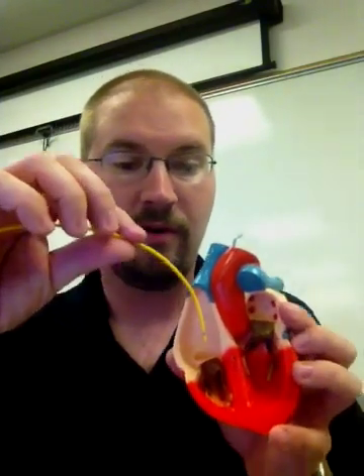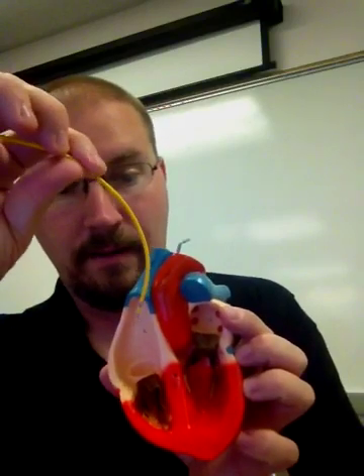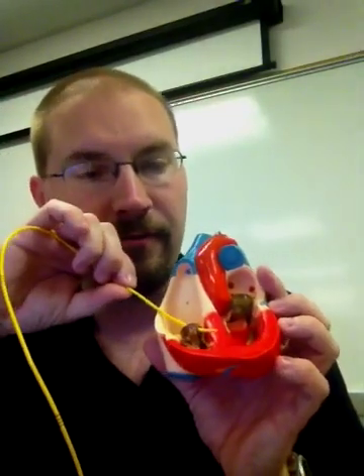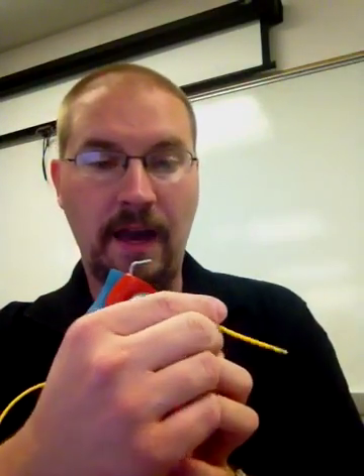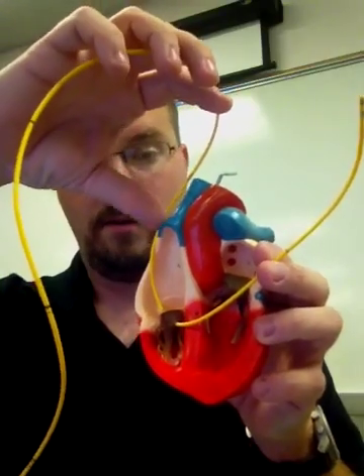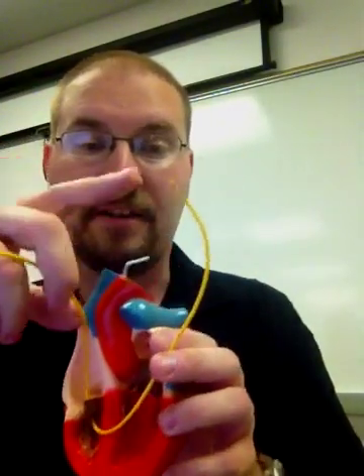The catheter goes into the heart through the superior vena cava. Just like a central line would sit right above the right atrium, with a pulmonary artery catheter we actually go into the right atrium, through the tricuspid valve into the right ventricle, and from there blood is pumped out through the pulmonary arteries. They inflate the little distal balloon and float it into the pulmonary artery. So properly positioned, this catheter sits in the pulmonary artery, but we have to go through the vena cava, right atrium, right ventricle, and then into the pulmonary artery — through the entire right side of the heart.